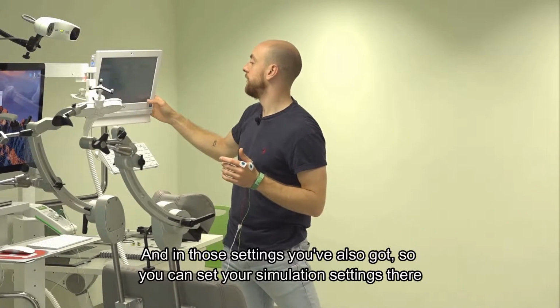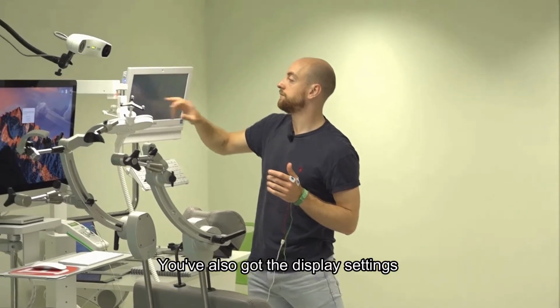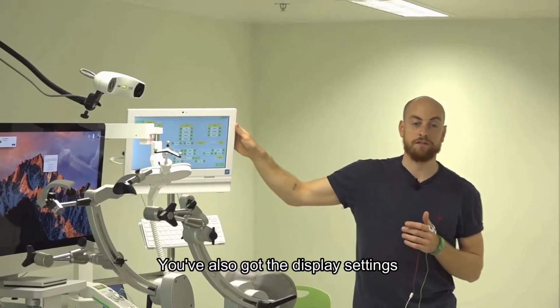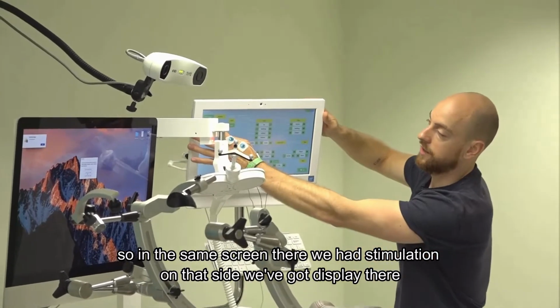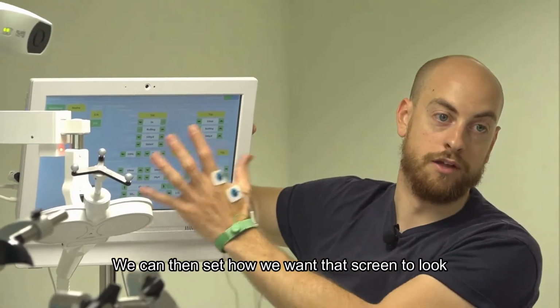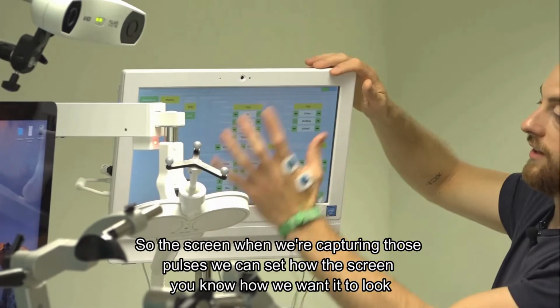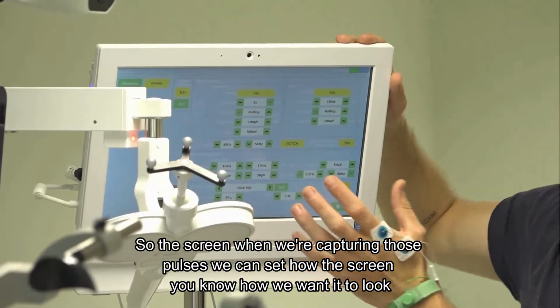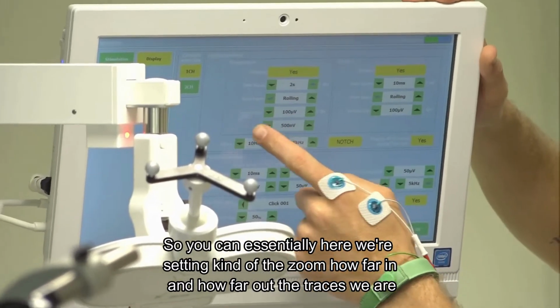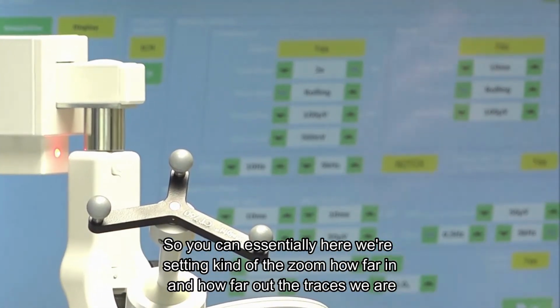And in those settings, you can set your stimulation settings there. You've also got the display settings. So in the same screen, we had stimulation on that side, and we've got display there. We can then set how we want that screen to look when we're capturing those pulses. Essentially here we're setting the zoom, how far in and how far out of the traces we are.